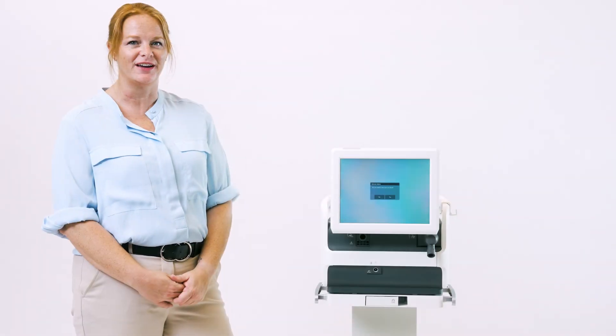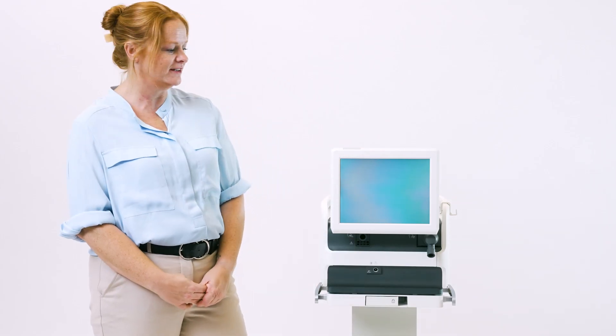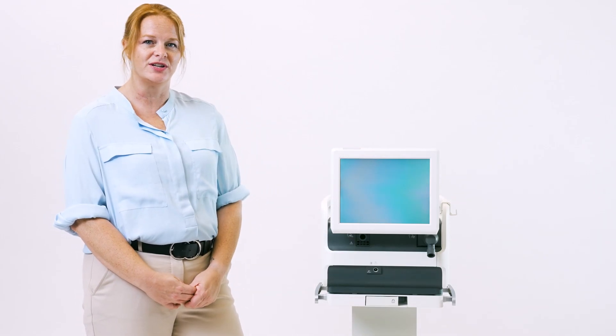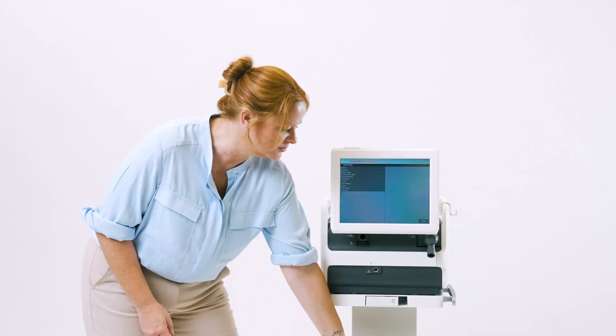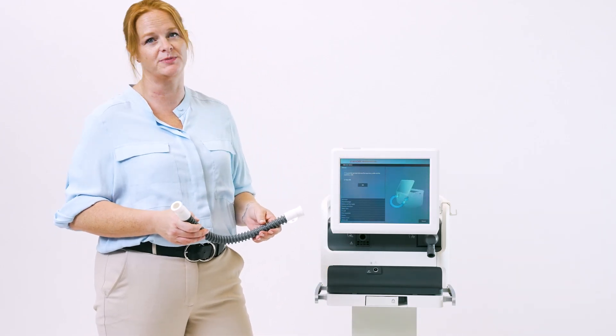Let's start with the pre-use check. First, touch Yes in order to activate it. Once it directs you, it will show you illustrations using your test tube to connect between the inspiratory and expiratory outlet.